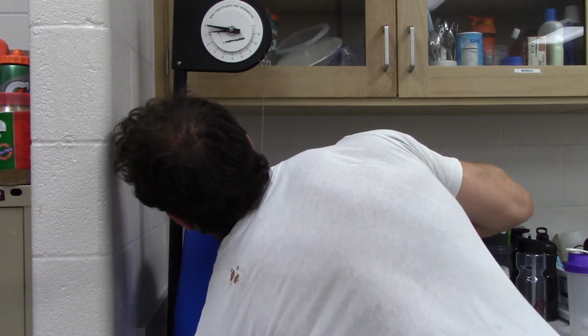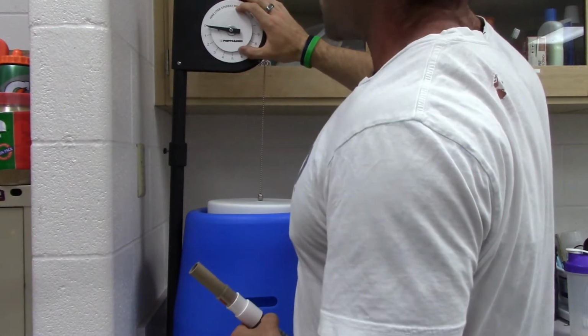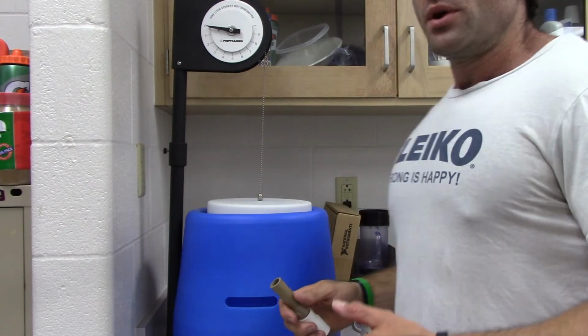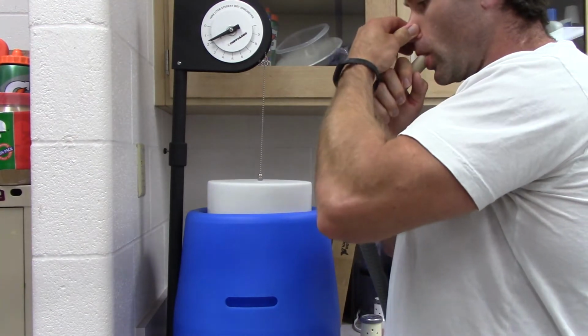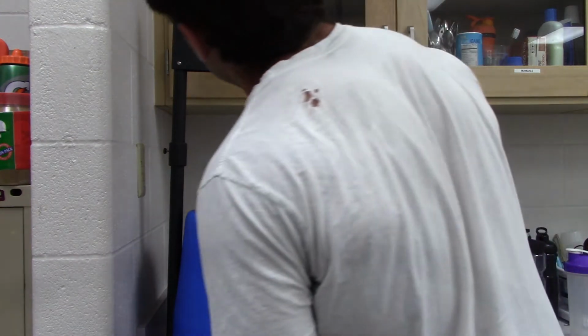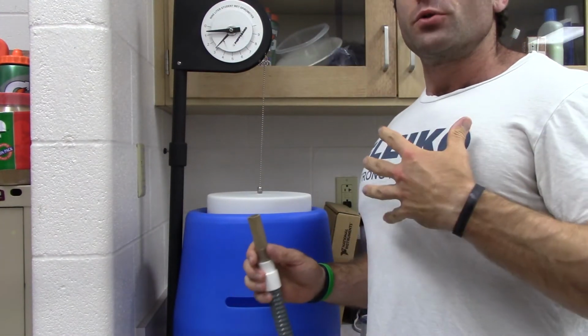Now, what I'm reaching underneath for is a stopper. And that stopper is effectively allowing us to get all the air out so we can go back to 0 and do another test. So then I'm going to take the biggest breath in I can. And that came out to 2.8 liters. And that gives me also my inspiratory reserve capacity.